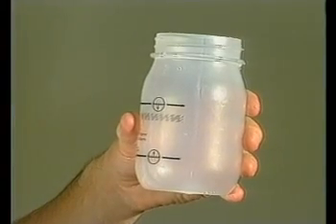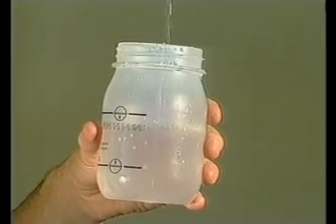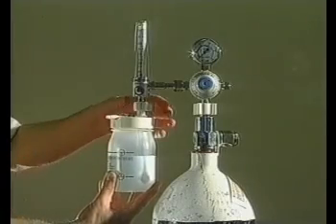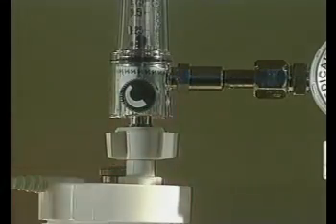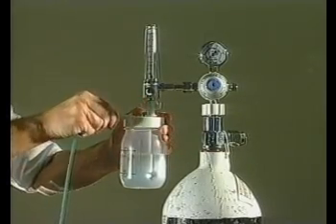If a humidifier is required, fill it with clean water to the level marked on the jar. Use either distilled water or tap water which has been boiled and cooled. Next, attach the humidifier firmly, but not too tightly, to the flow meter. Take care doing this, since oxygen leaks often occur at the point where the humidifier joins the flow meter. Next, attach the oxygen tubing to the humidifier. Make sure that the oxygen tubing is pushed well onto the humidifier nozzle, as leaks can also occur here.